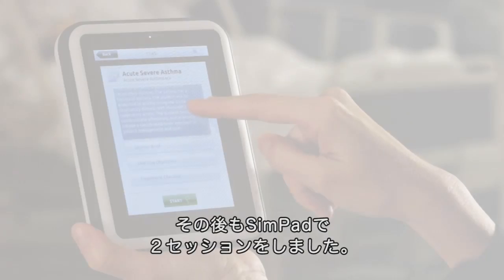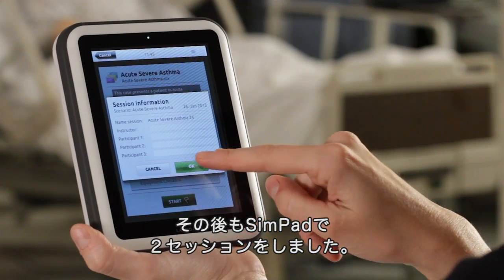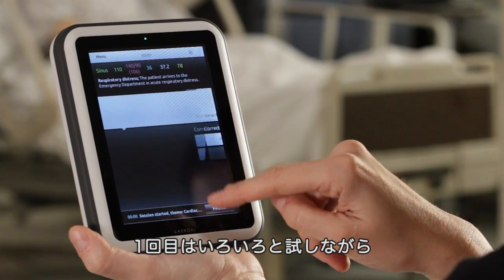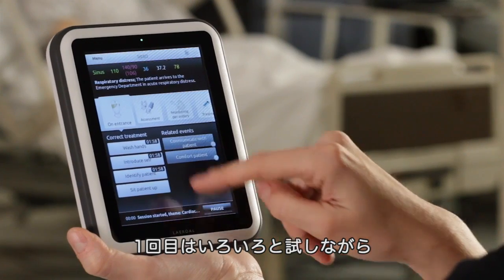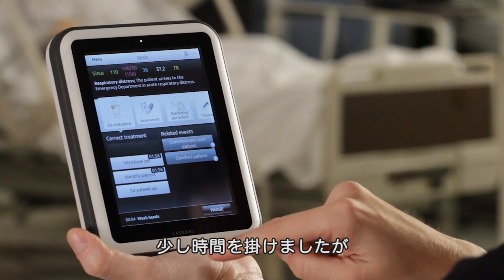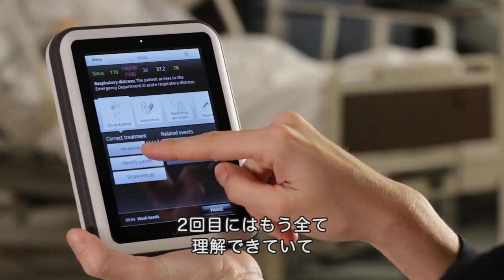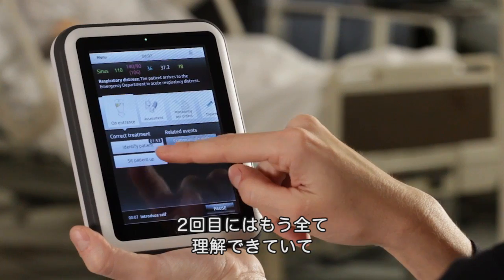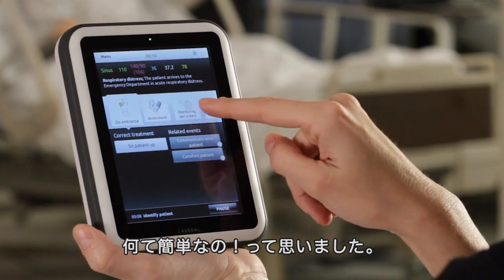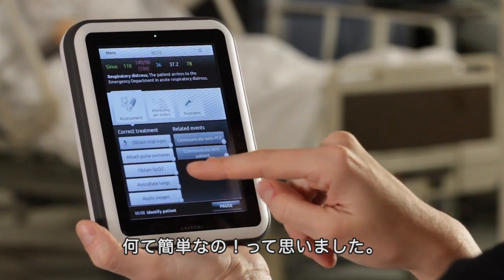We did two different cases. The first case was the first time using it — I had just played with it a little bit, so it took me a little time and I was a little slow on the uptake. The second case, I felt like I had it all figured out. So it was that quick to realize how simple it was.